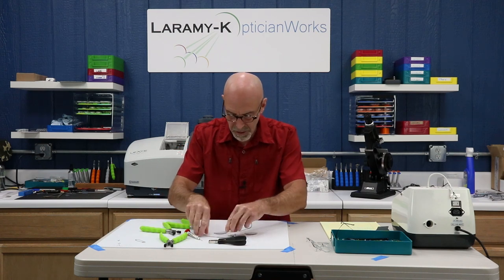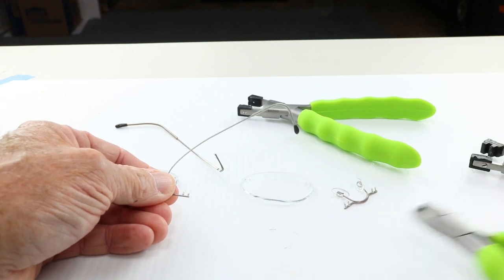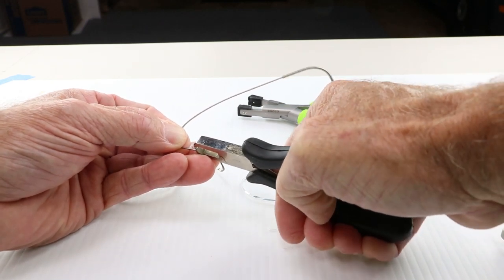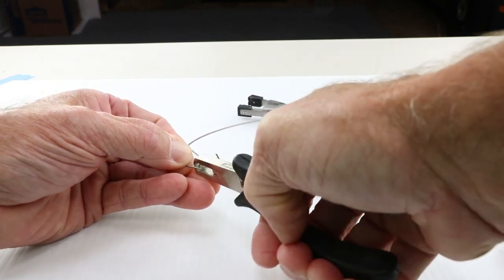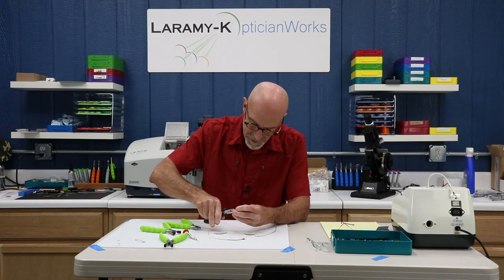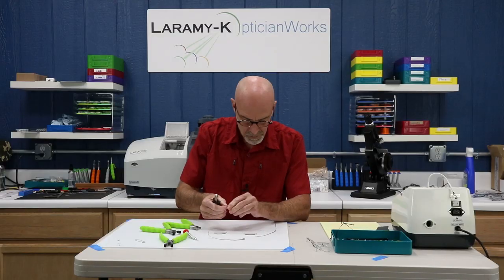I've got my lenses and my chassis separated. The next step is I need to nibble away the bushing if any are left behind — though they're not always there. Coming in at just a little bit of an angle seems to help. You do not want to destroy the barbs; you should not be cutting into the metal. You're only removing the little plastic bushing pieces that are left over.